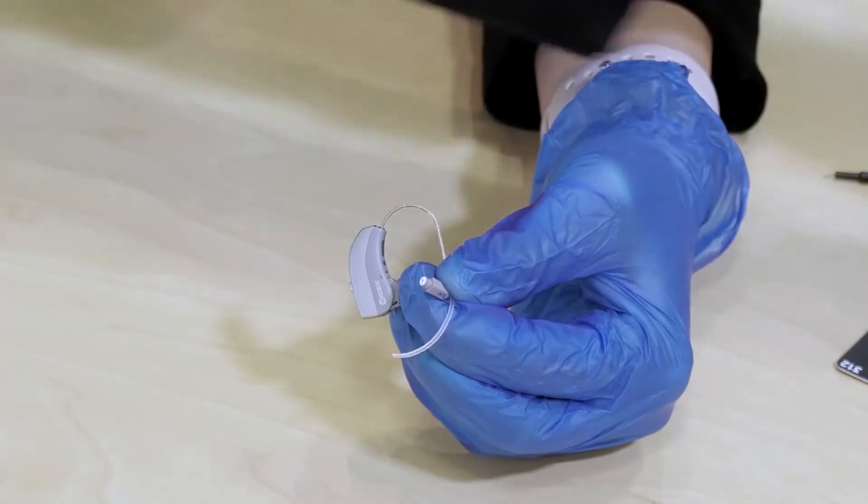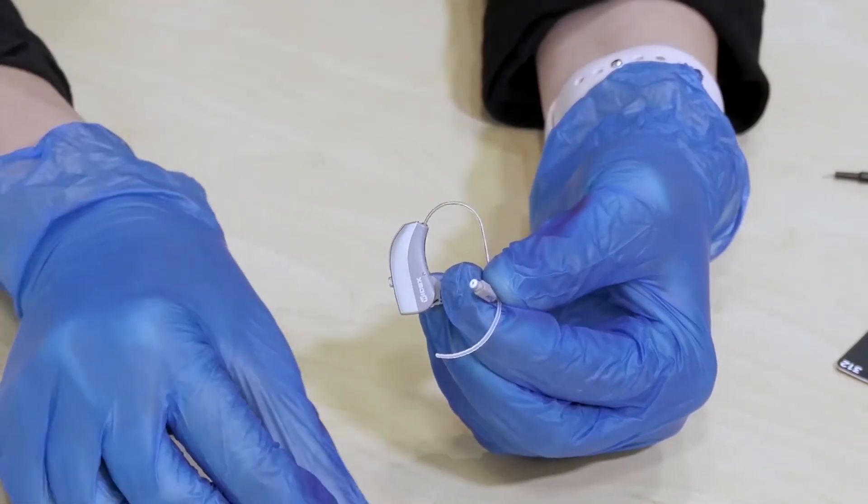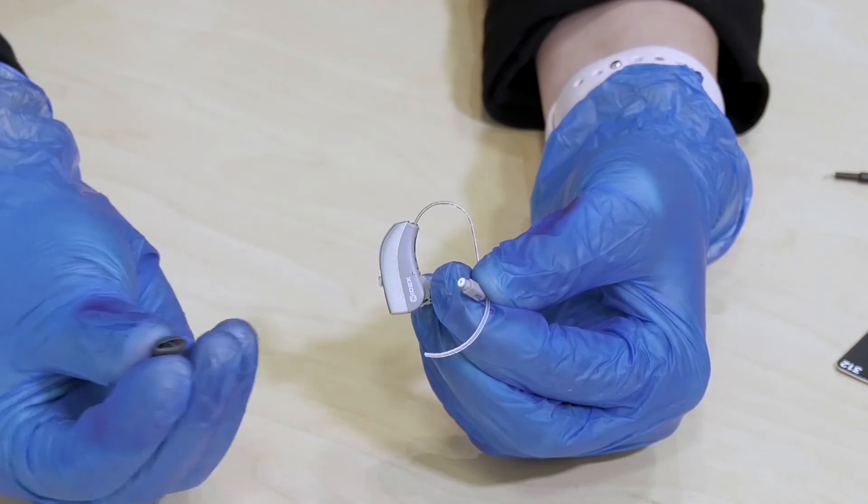Now the last step you need to do with this one is to put this dome back on. It is important that this dome is put back on all the way. You don't want it to come off in your ears.